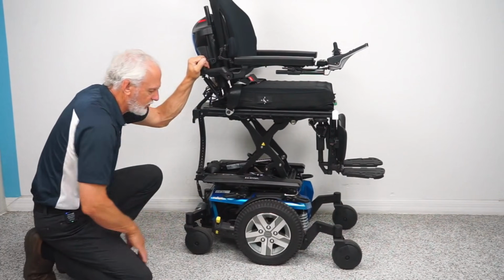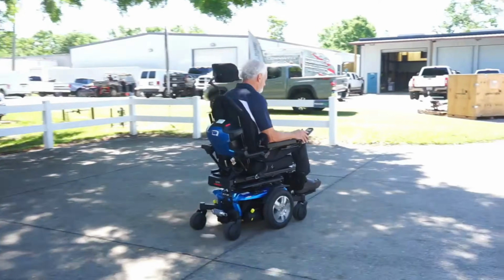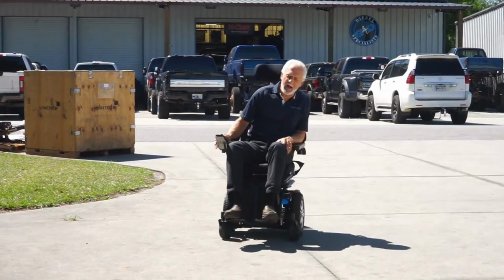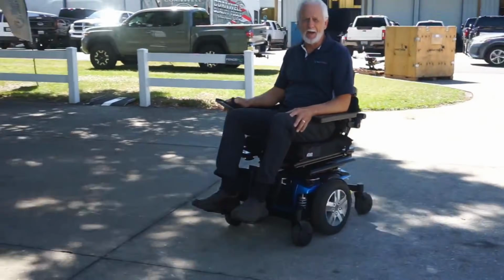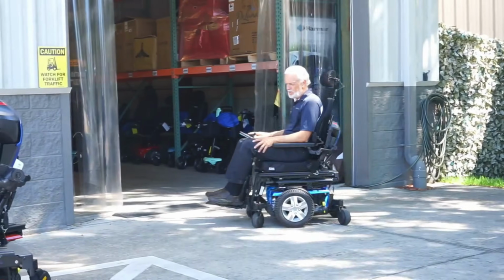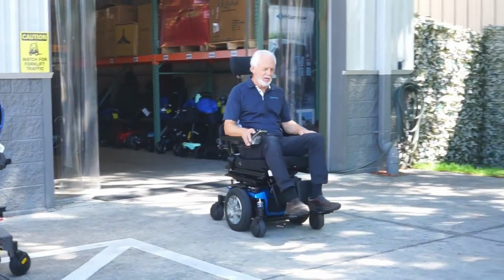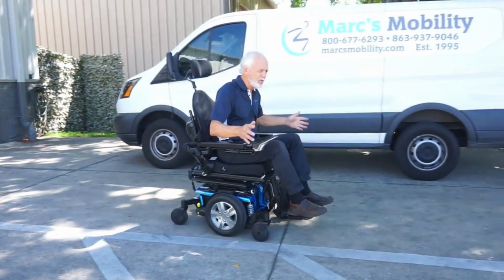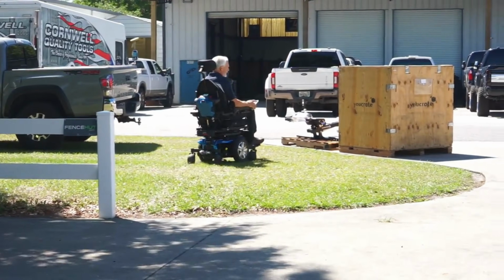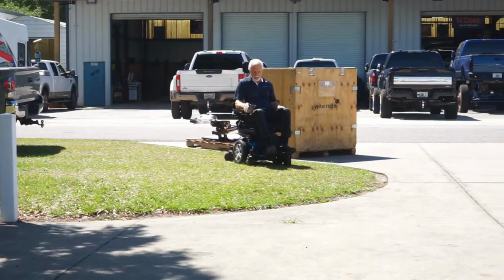Now, mid-wheel drive, when we are selling one of these products, is primarily going to be used for inside usage or outside on hard top surfaces. So the advantage of it being the most compact with the turning radius is great, but the downside is, since you do have those swivel wheels in the front and the rear, if you were to take it on softer surfaces and you go to turn, sometimes those small caster wheels can dig into the ground, and then it causes your drive tire to spin and you could be stuck in place. Doesn't mean that will always happen, but that's just the downside of a mid-wheel drive.